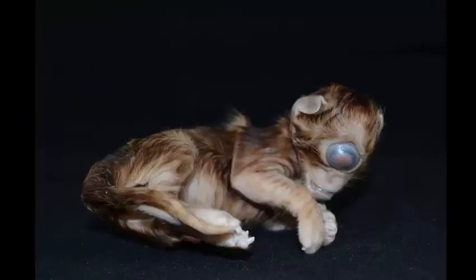Okay, let's start the weekend by getting out our pens and papers, and give yourself 60 seconds for this particular one. It's very straightforward. This is tissue from a kitten. All I want is a good morphologic diagnosis. Okay, time's up. We're back.